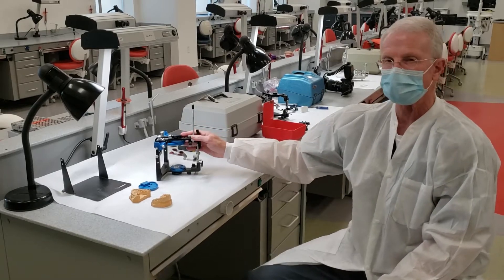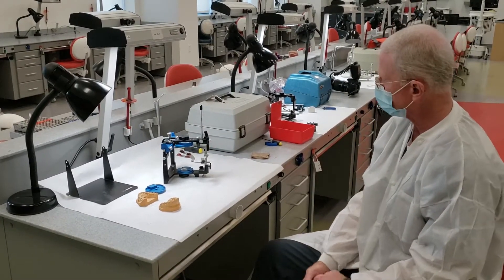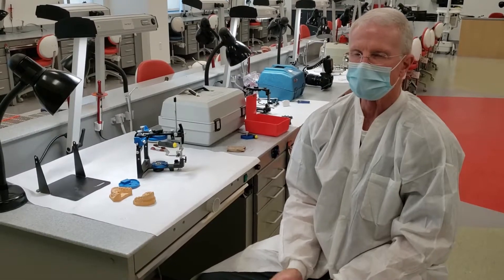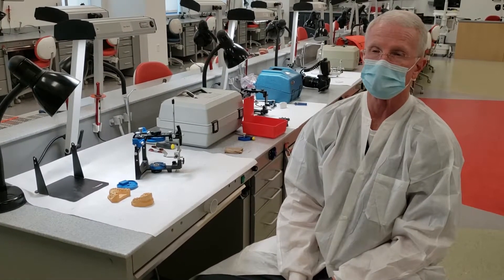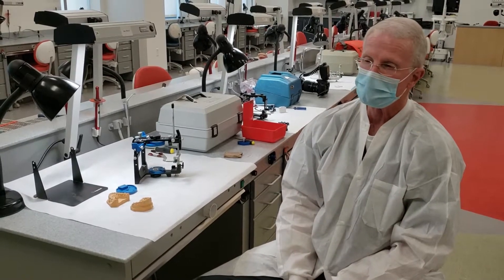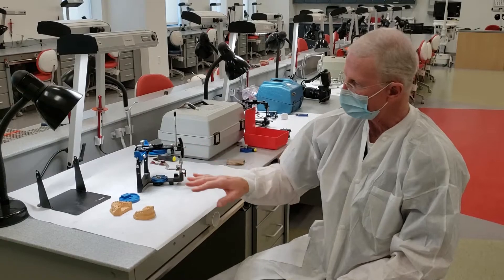Very good. Let's come back to our Panadent because that's the one that you're probably going to be using the most often. Dr. Lauder has created, in fact, three very nice videos on mounting casts on a Panadent, and I would refer you to those. I highly recommend them — they're done very well and give you a good overview of this mounting procedure.